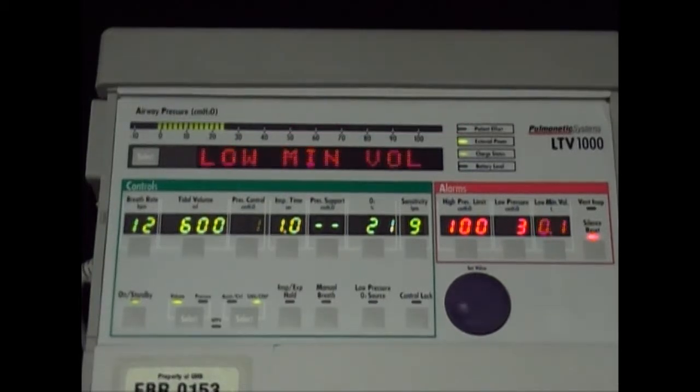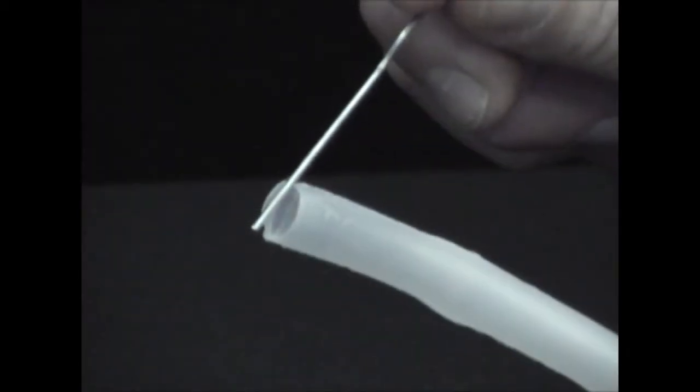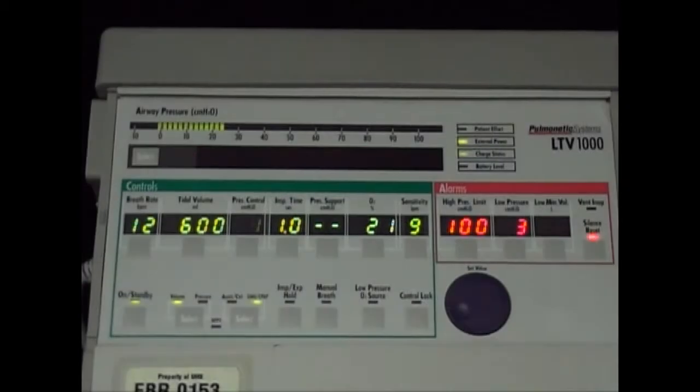Now we're using our speech cannula. Again, our settings are SIMV of 12, tidal volume of 600, PEEP of 5. As you can see, our peak inspiratory pressure has gone up to around 24. The reason for that is the narrowing at the bottom of the speech cannula where the flap valve is. You will only see the increase in pressure in the cannula itself and not in the patient's lungs.